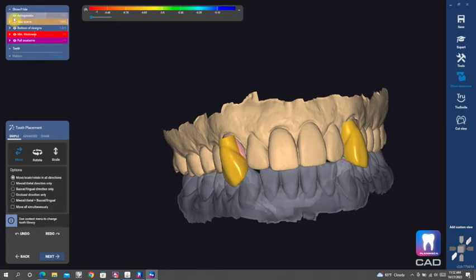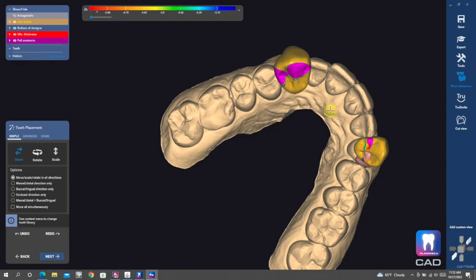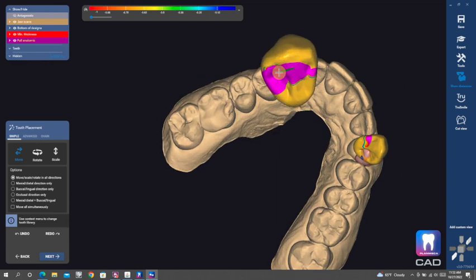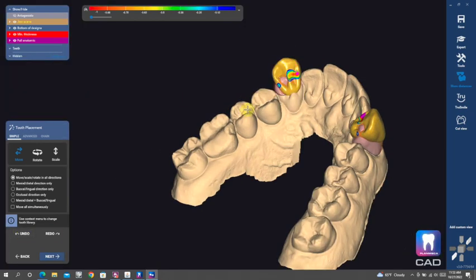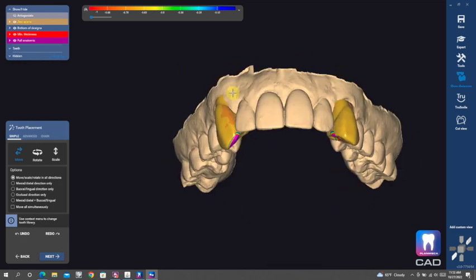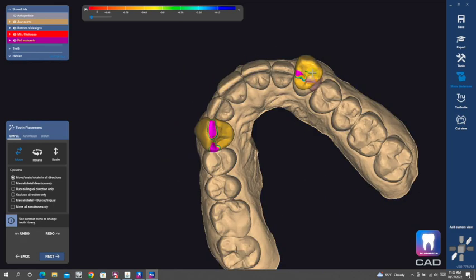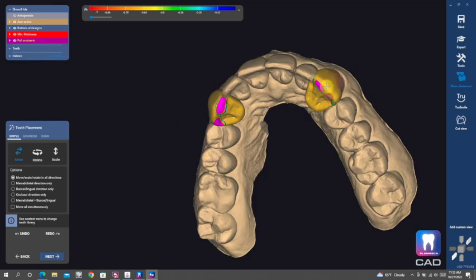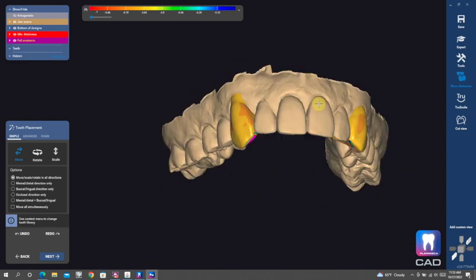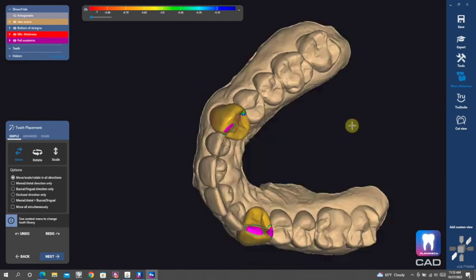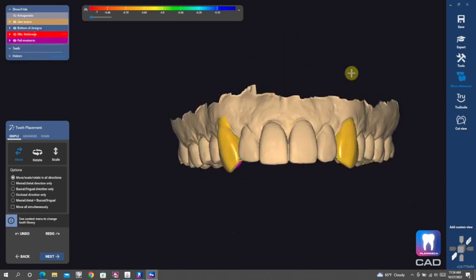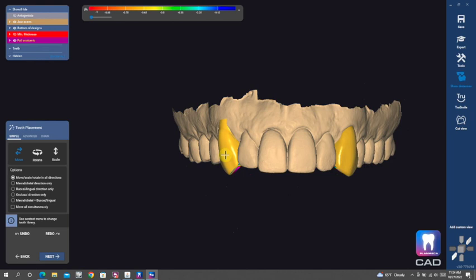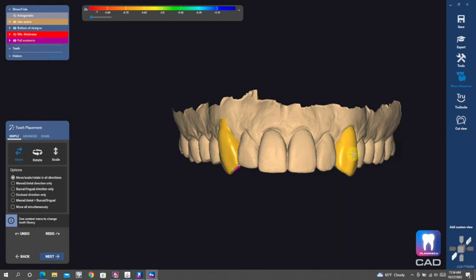So you want that margin ramp to be very, very small. So I think it usually is like a half a millimeter or a millimeter. I will take it down all the way to 0.01. So very, very small. I don't want a lot of this restoration touching the tooth. Just at the finish line. Very, very small amount at the finish line.